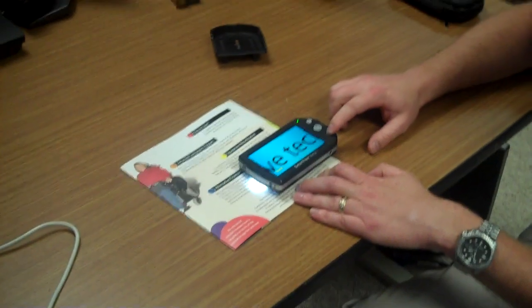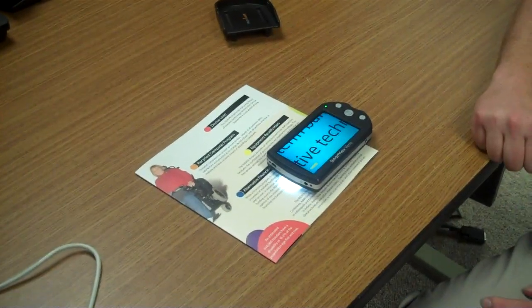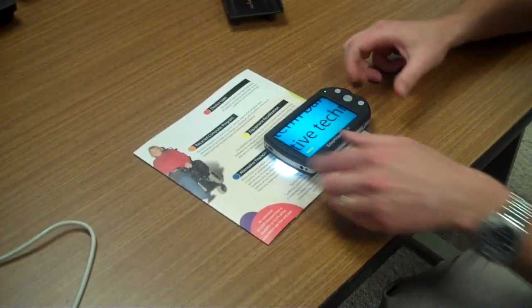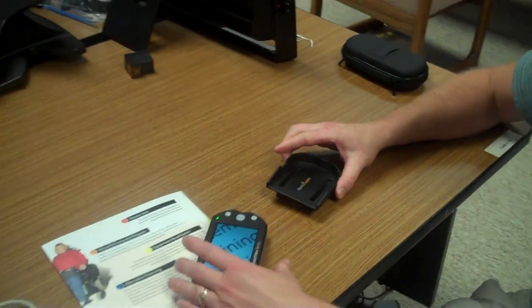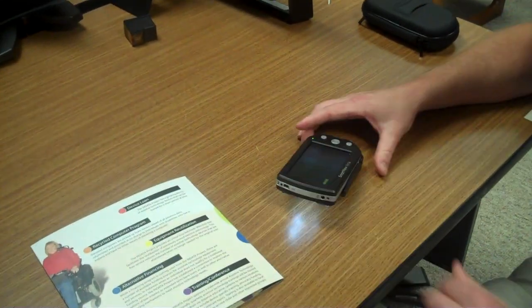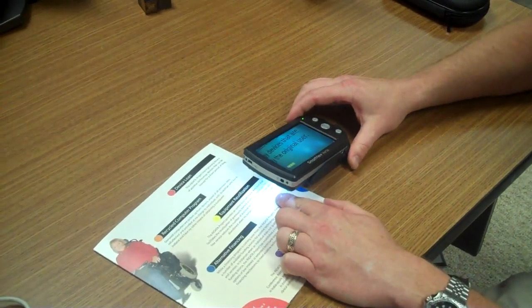You can also bring down the levels of magnification with those five levels of magnification. It has the ability for you to put it in this writing station — within the writing station you would put it here, and now you can write with the unit as well.